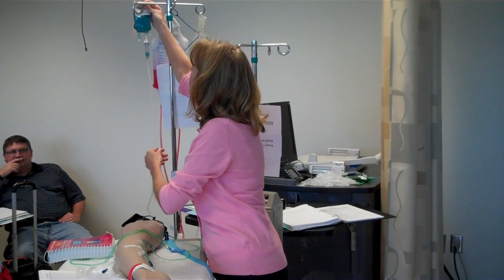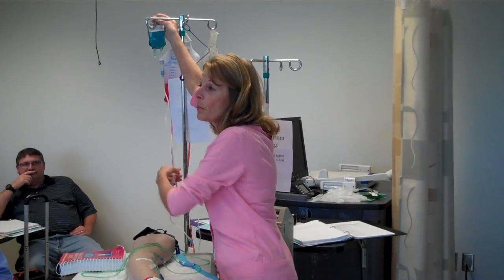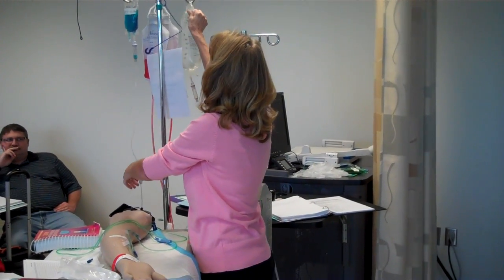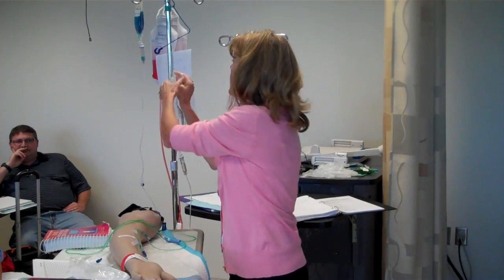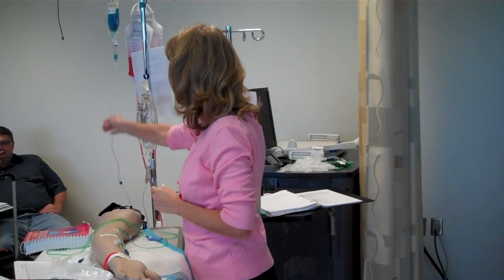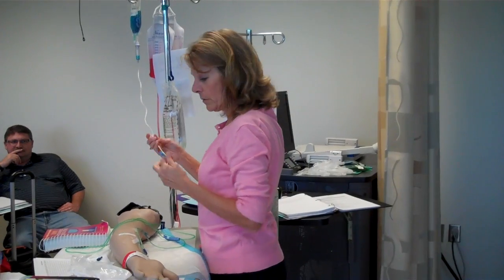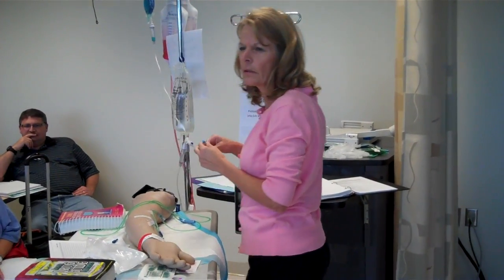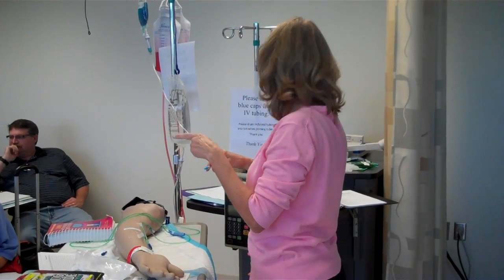Alright. If you're afraid you might forget to lower your primary, because here gravity is going to take over, the highest bag always runs. If you want to, go ahead and lower this primary right now. Okay, and a lot of students like to do this so they don't forget it. So I'm going to go ahead and drop this lower, because I want my higher bag to infuse. Alright, so I am going to very slowly go ahead and just, there was a basin here. Is there a basin over there?